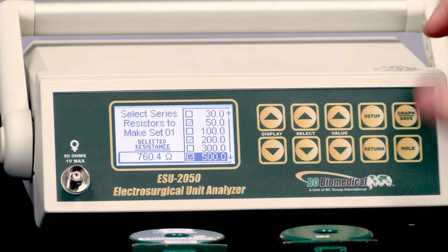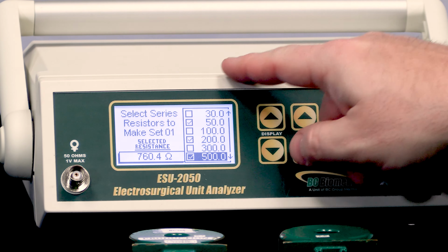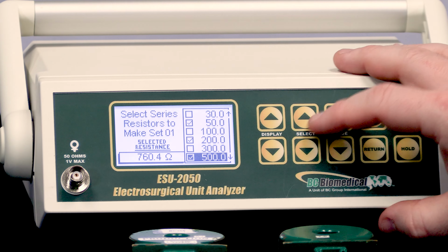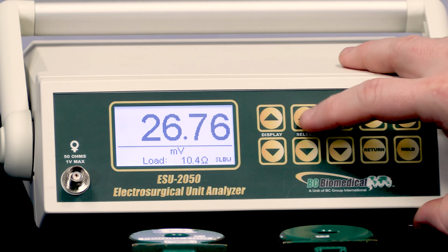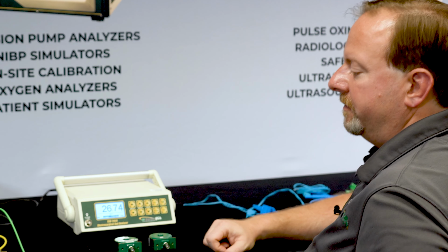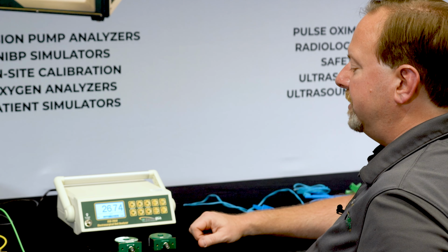And that way now I have an easy 760 ohms configured by adding in these 3 loads together, or in this case 4 loads. So now when I have load set 1, it's 760 ohms. So that allows me to create quicker configurations of multiple sets of loads that I have, if I have up to 12 loads in my inventory and I want to quickly select a set of loads to use.